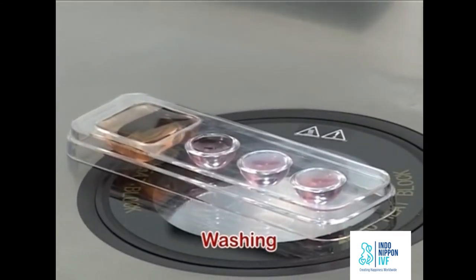Aspirate the oocyte with minimum volume of WS1. Wait for 5 minutes. You can judge the survival of the oocyte at the end of this step depending on the recovery of the shrunken oocyte.